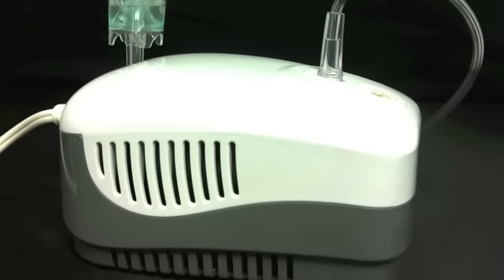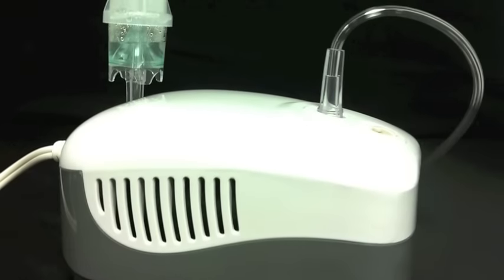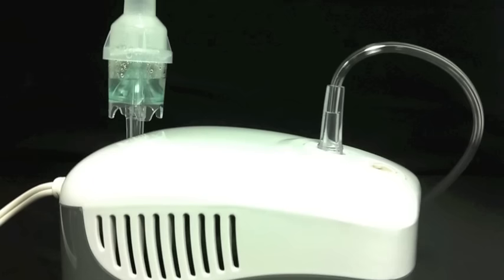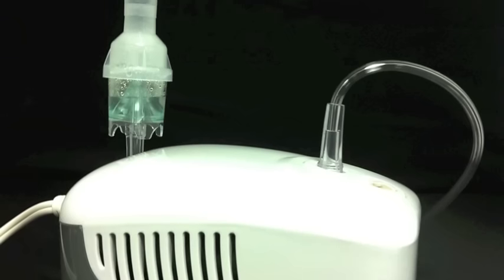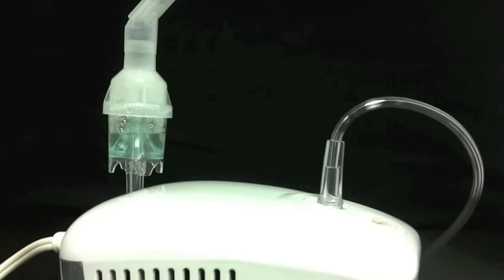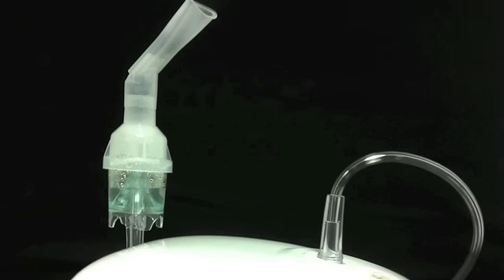Compressor nebulizer systems provide air pressure that works with your nebulizer cup to turn liquid medications into a fine mist. This allows the medication to go directly into your lungs.